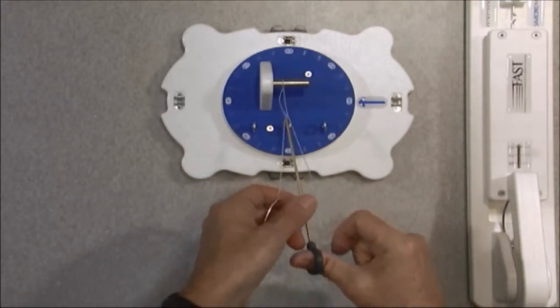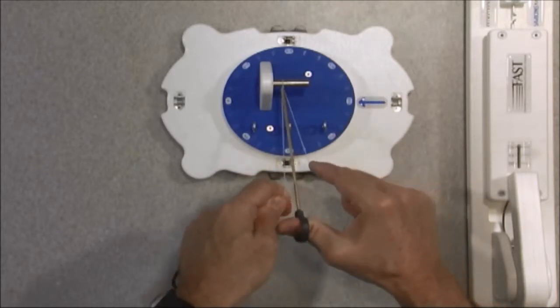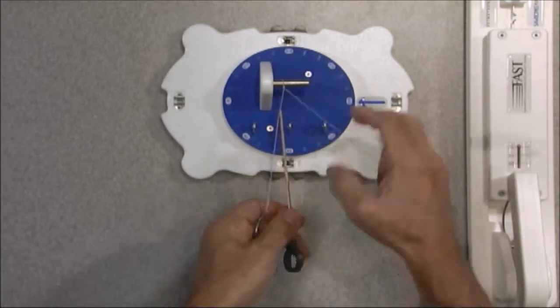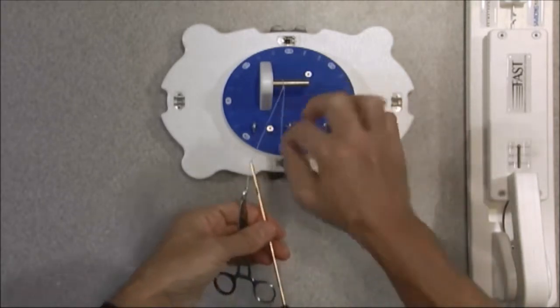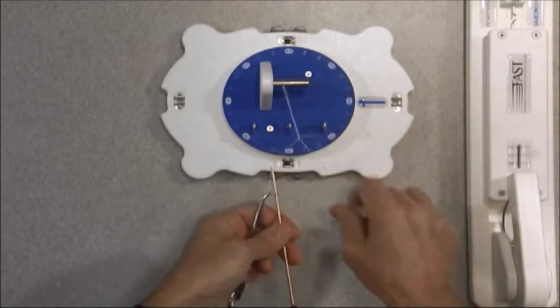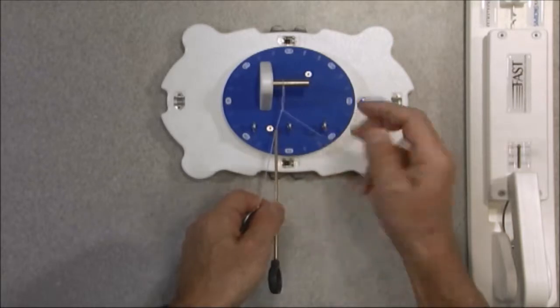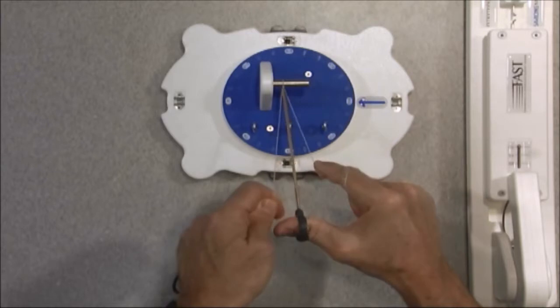Do anything to create a whole lot of friction in there. I'm going to pass some hitches, and I'm going to keep my tension in my left hand. So my left hand is the post, and it's going to remain the post. So there's my first hitch. I'm going to come down, pass another hitch. And I have not flipped it. If it was done properly, I would have flipped the post to my right hand. But I'm not doing that. So there's another hitch.